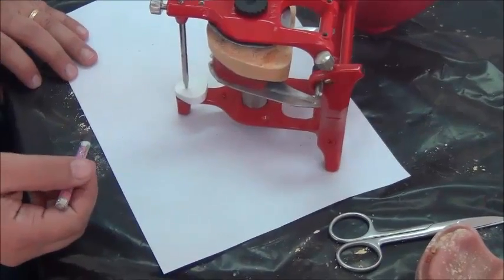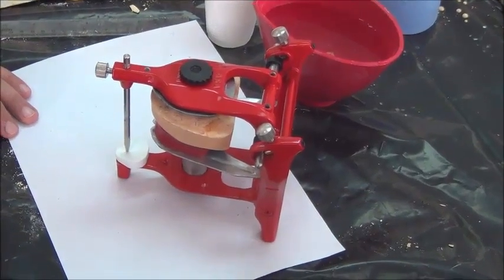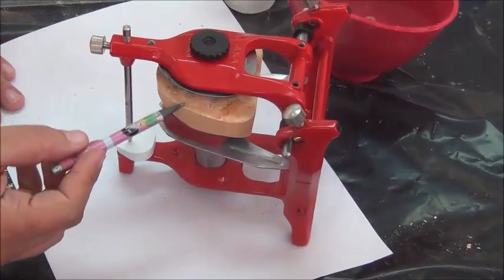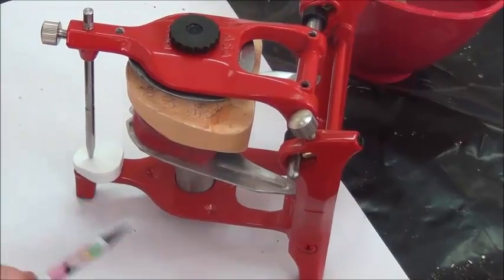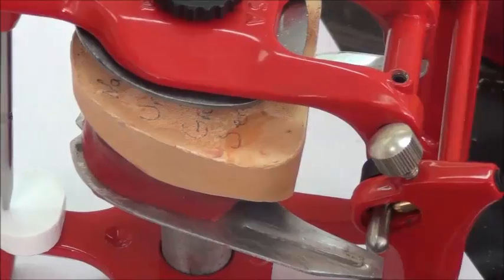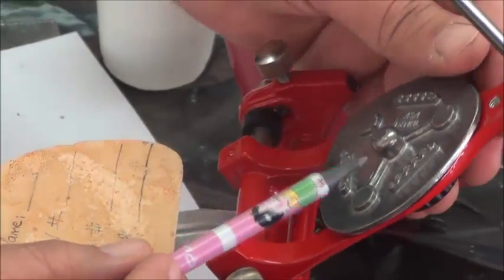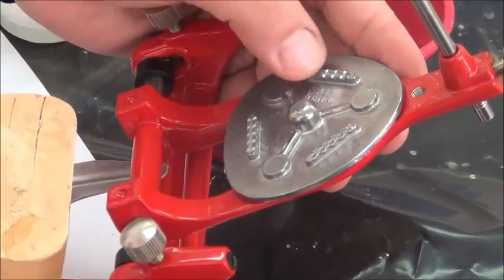So mounting is fixing the cast to the articulator. So what is the material we're going to use? The material for our selection today will be a plaster. Plaster is the material that will bind to the cast chemically, where crystallization begins from the cast, and it will bind to the articulator mechanically.